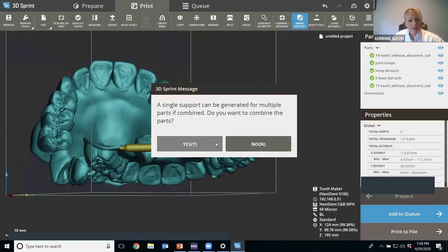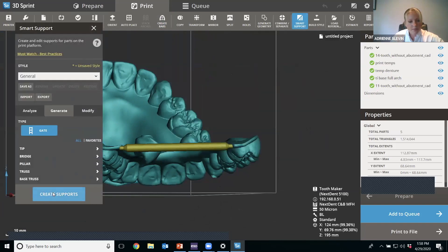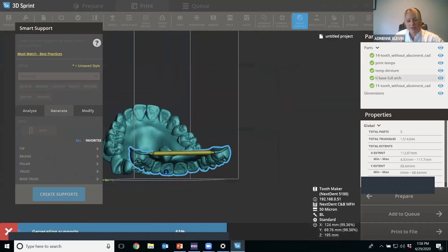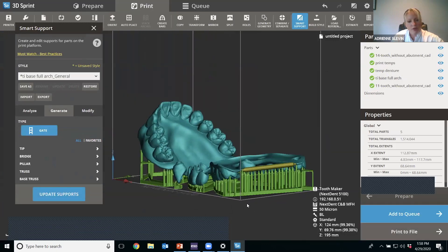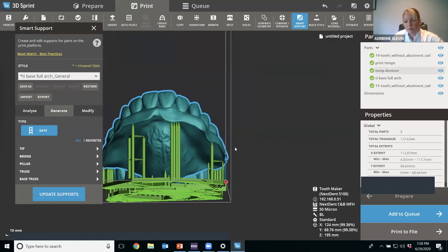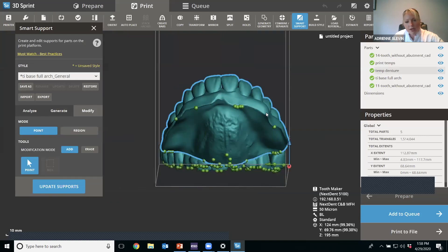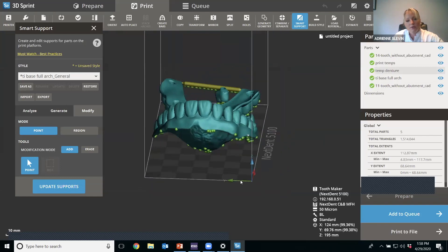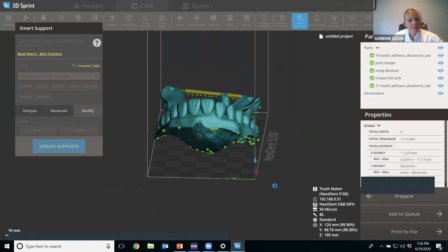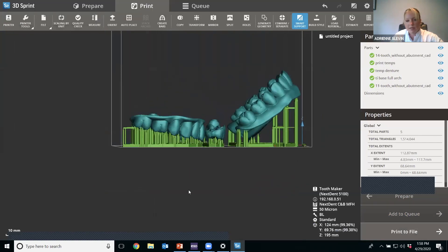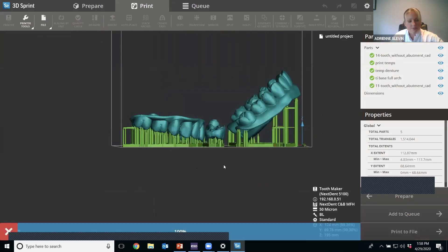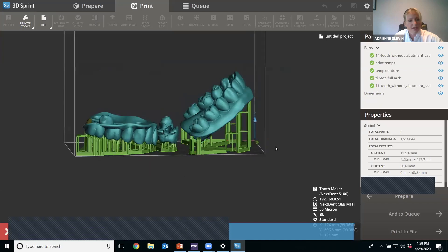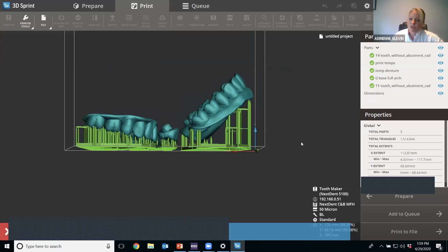Adrian hits Smart Support, selecting fine supports that peel right off without scarring. She manually adds additional supports to any large flat areas lacking coverage to ensure accuracy and success. She adds everything to the print queue and wraps up, noting that tomorrow she'll cover post-processing, cost per part, nesting models, and diagnostic tricks. Neil confirms no other questions in the chat.